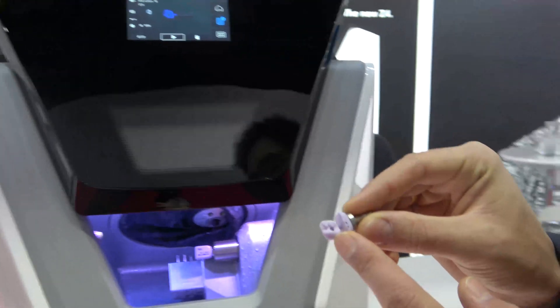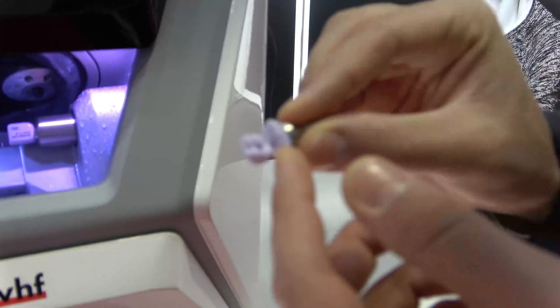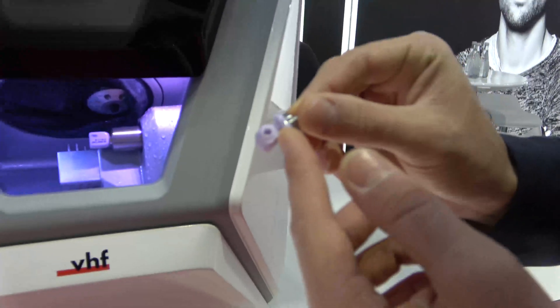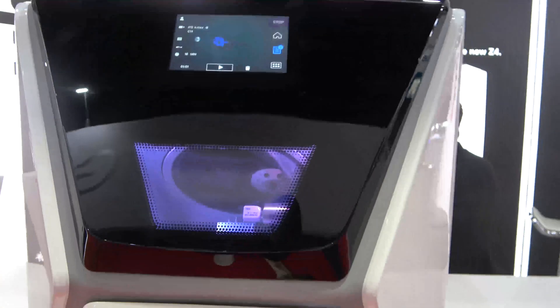After 18 minutes, we get this crown with a hole in it — and this is also unique: we can build this hole out of the full block. The spindle automatically grabs the tool, measures the tool length, and starts the milling job.